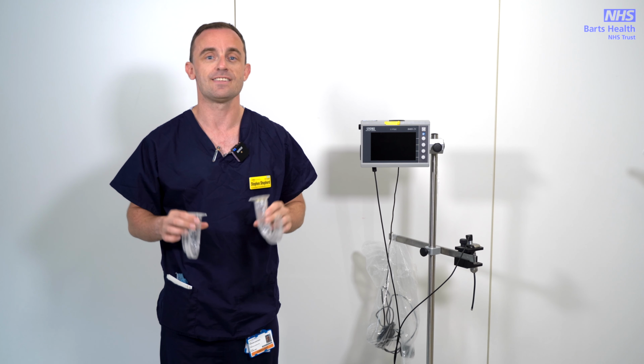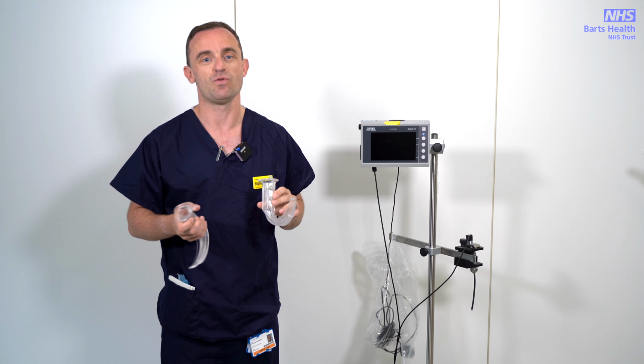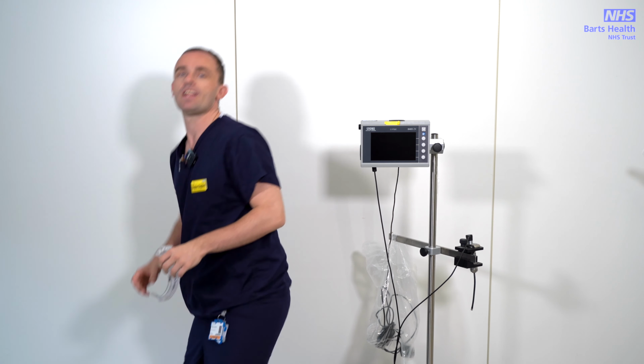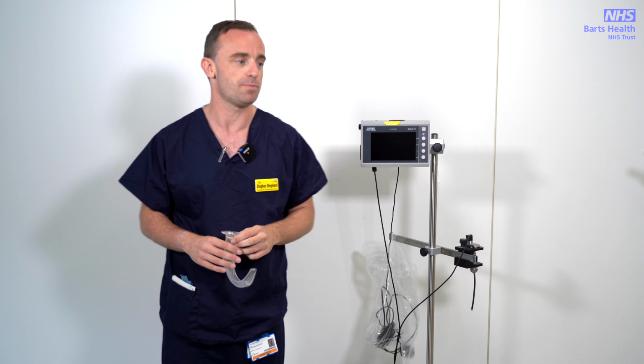What I would say is that you need to have pretty good mouth opening to work with both of these, which means that if for whatever reason that's not the case, this may not be the most use. So if you find a patient like that, and you want to consider using this, perhaps speak to one of the consultants about what the best approach would be.